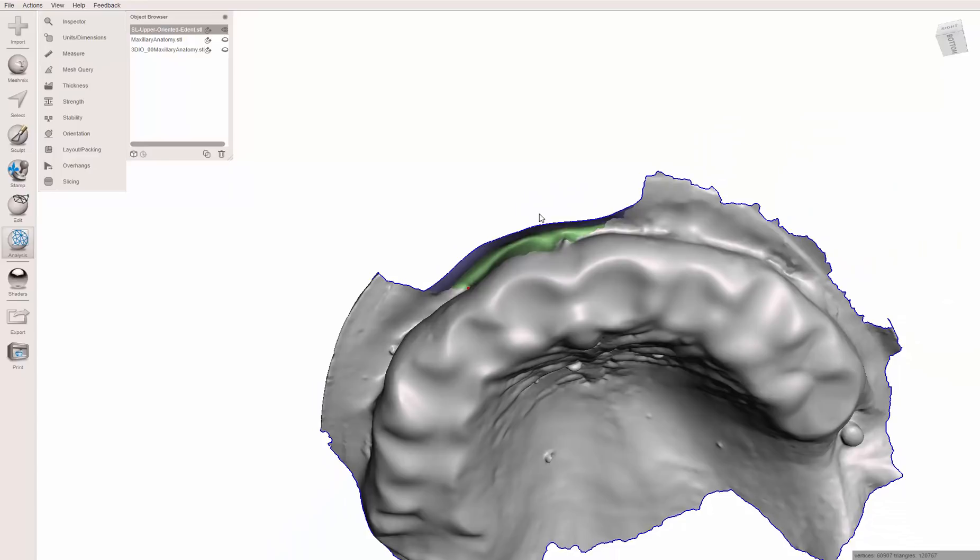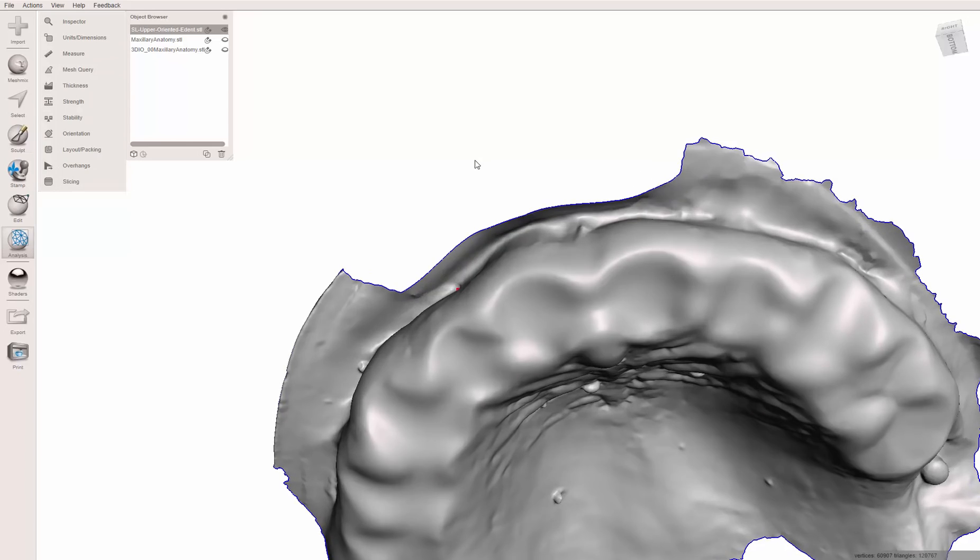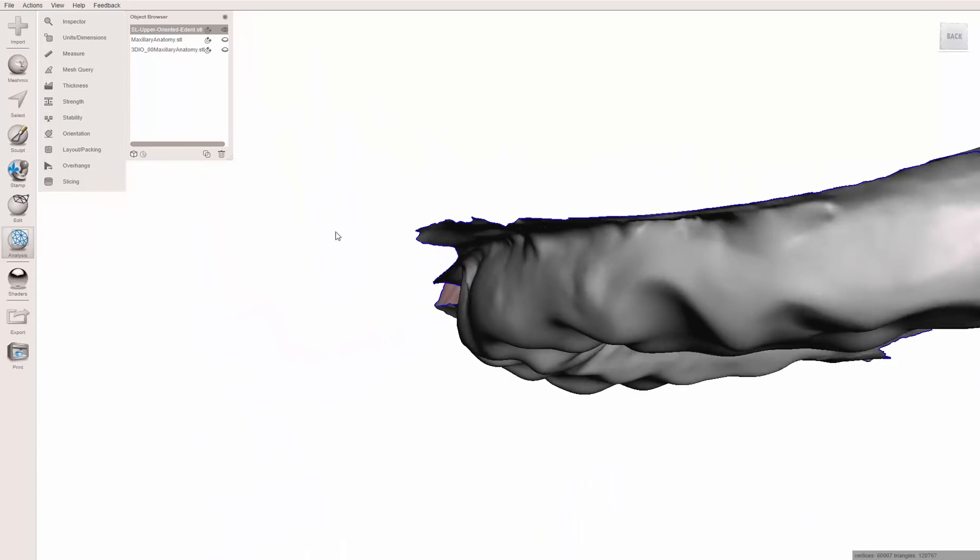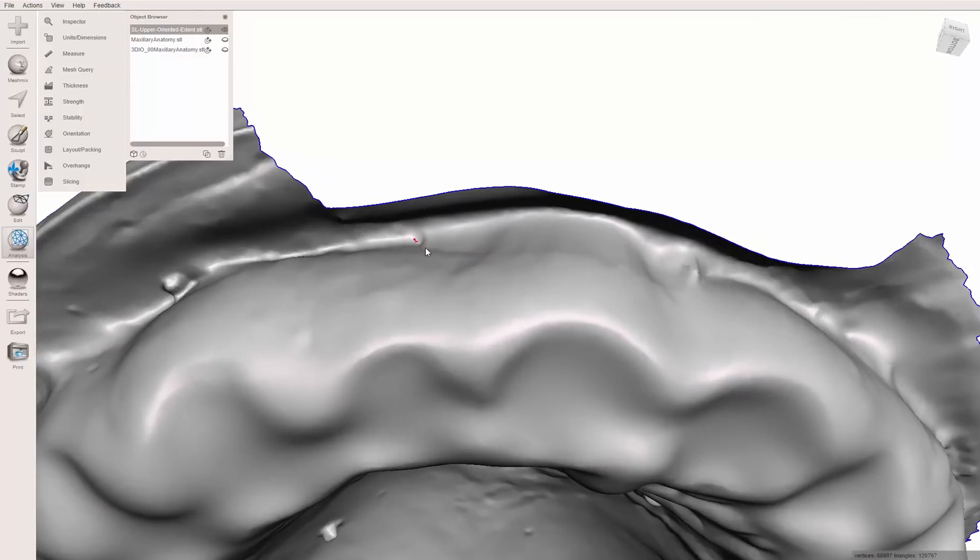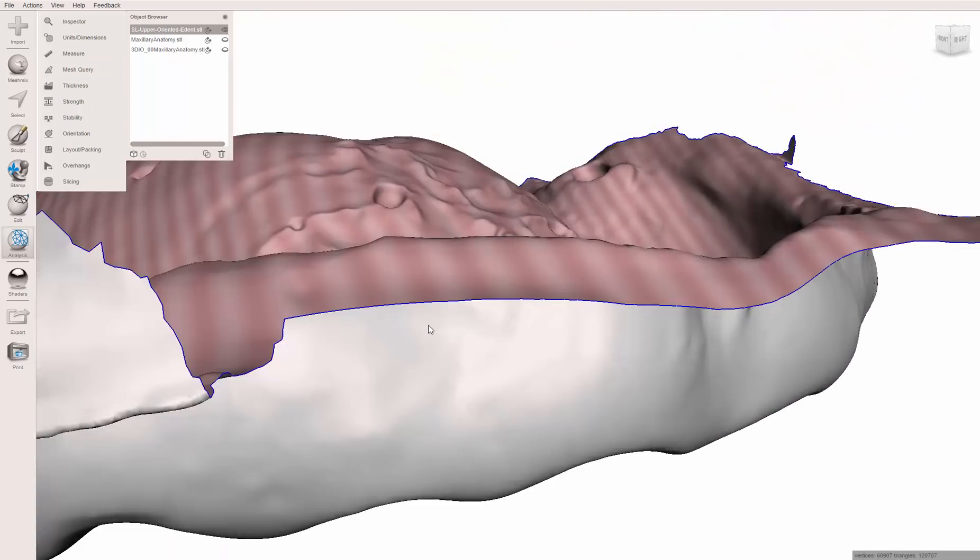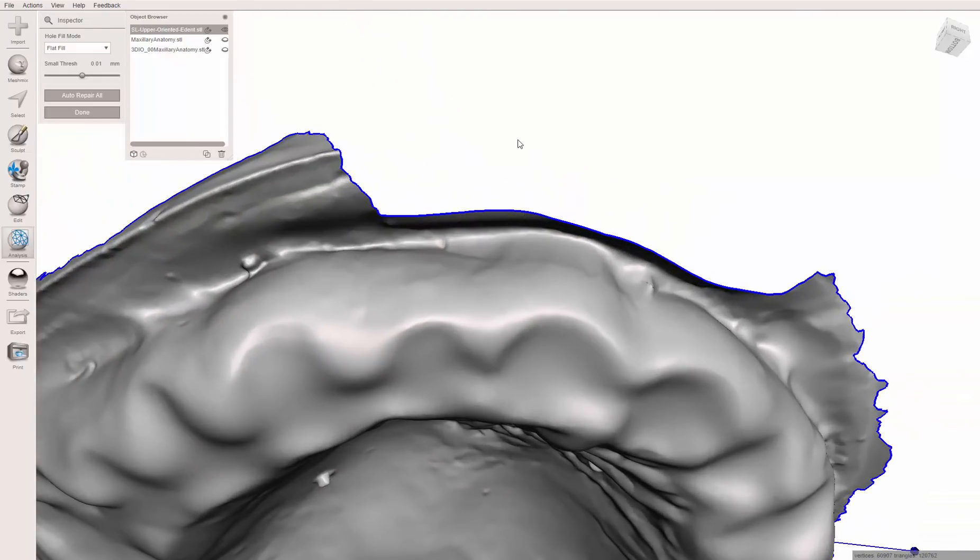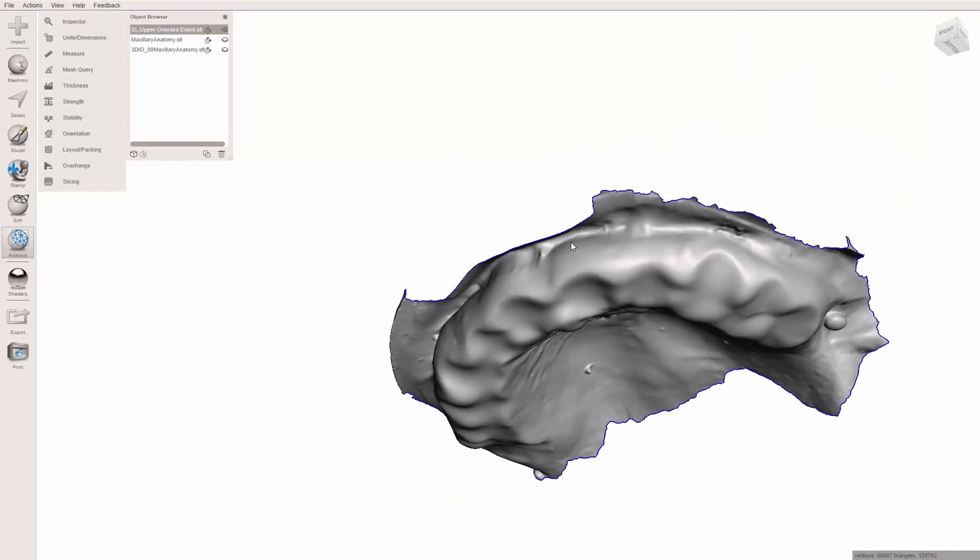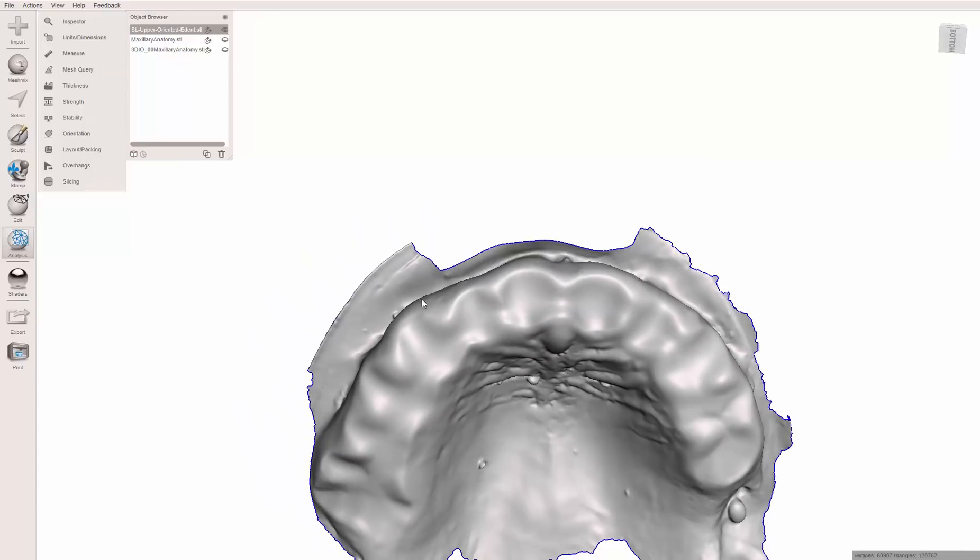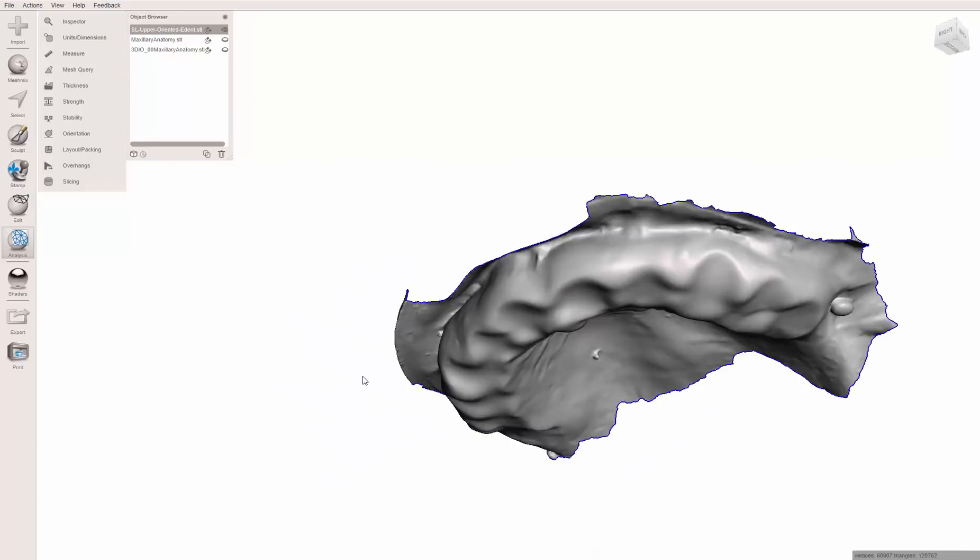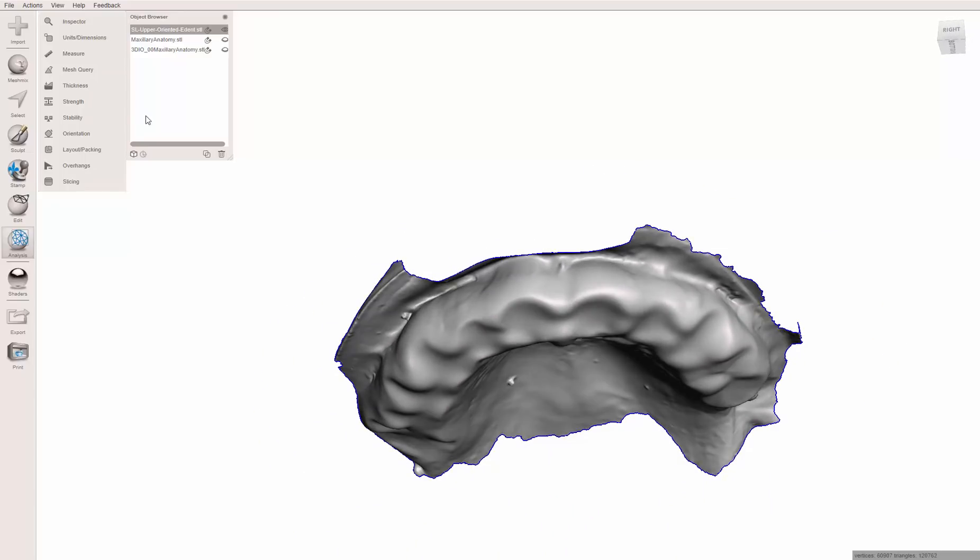If I hit control A, control shift G, which is the same thing as remove face groups, now I can see this nice gray model. Now when I go to design a denture, I actually have a vestibule. There is one little red spot down here. If you ever see that in your model, it's usually an error, something the software doesn't like. Just go to inspector, it lights that up, click that little sphere, and now it's gone. Anyway, so now I've got a vestibule to work with. I can actually make a denture that goes down there. Again, it's a guess, but it's kind of like taking a stone model and grinding out the vestibule. Is it the best solution? No. But it's better than having nothing.